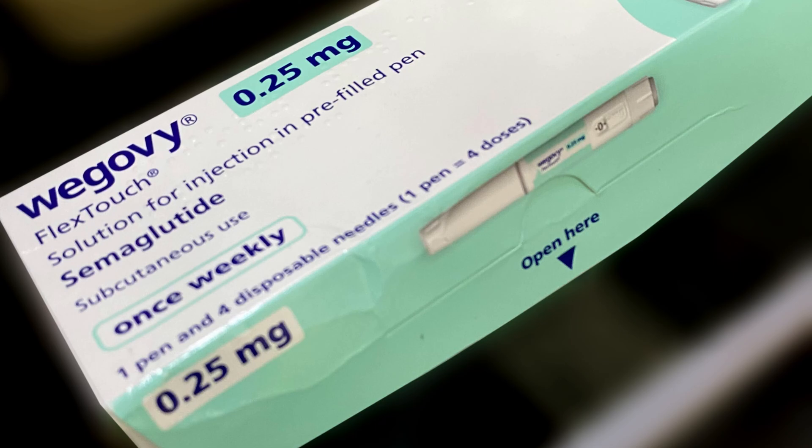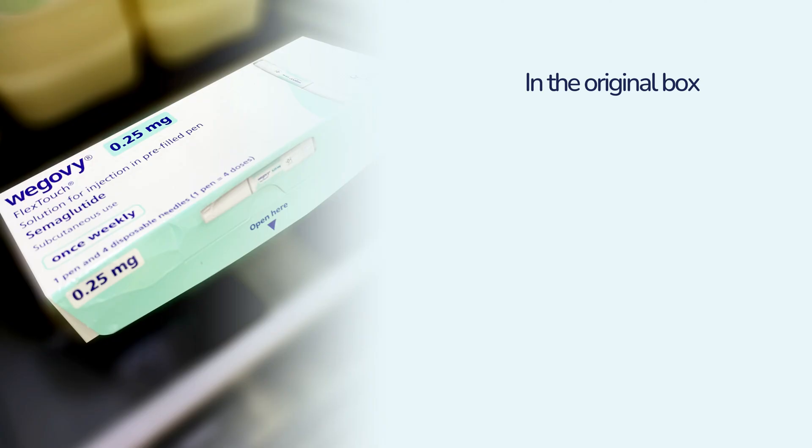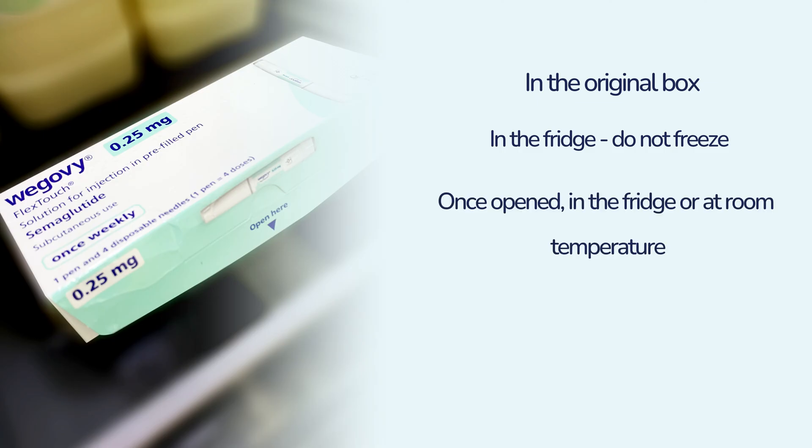An unopened FlexTouch pen should be stored in the original box and kept cold in the fridge. Do not freeze the pen. Once open, your pen can be stored in the fridge or at room temperature for up to six weeks in the original box.